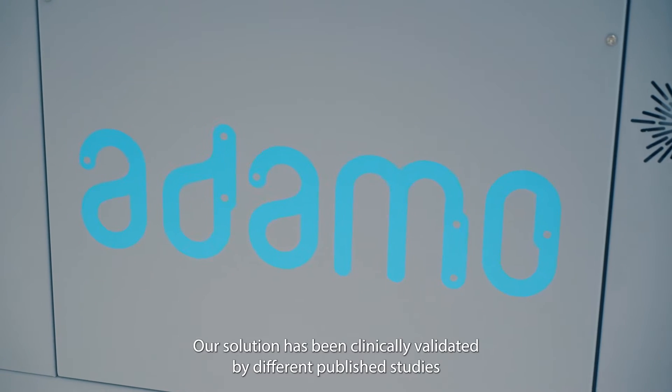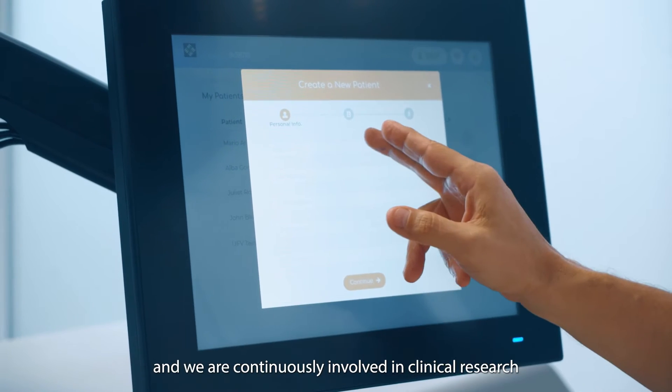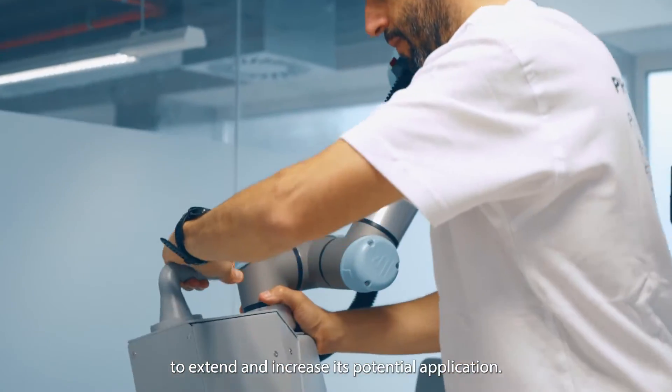Our solution has been clinically validated by different published studies and we are continuously involved in clinical research to extend and increase its potential application.